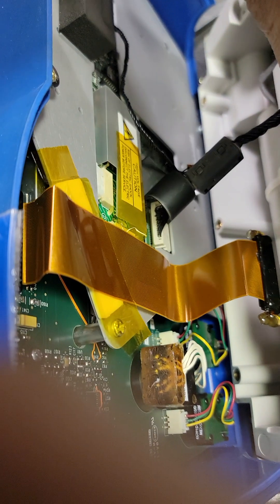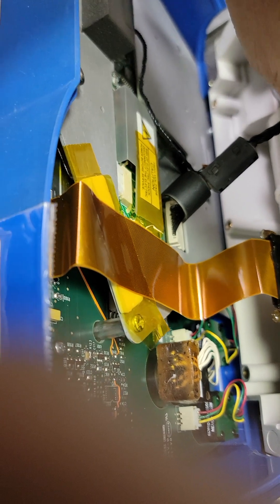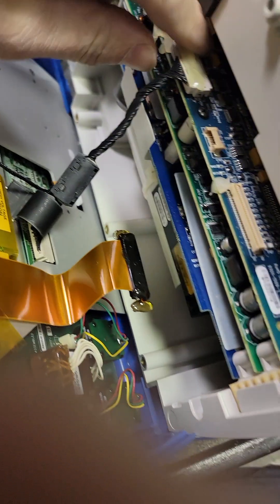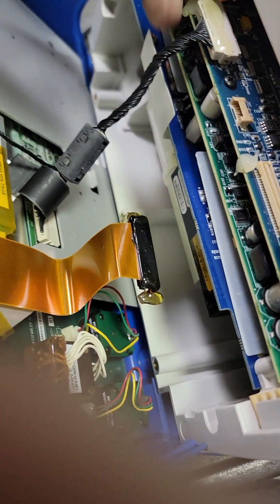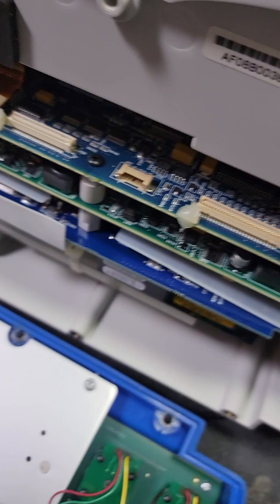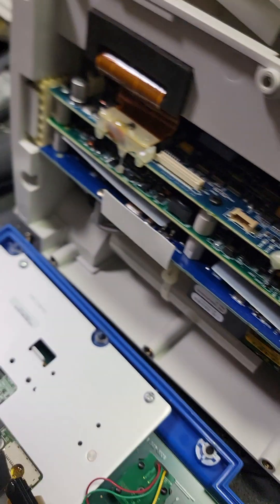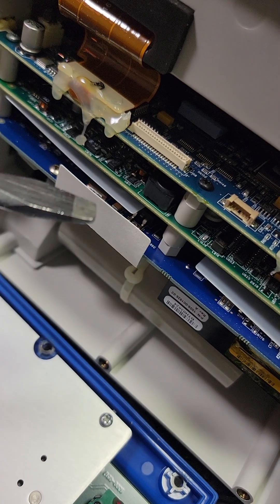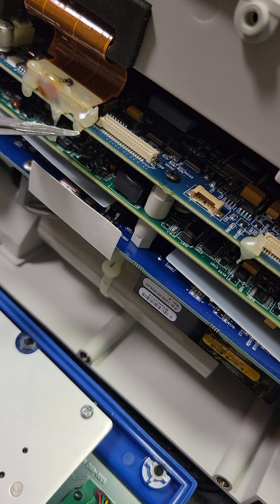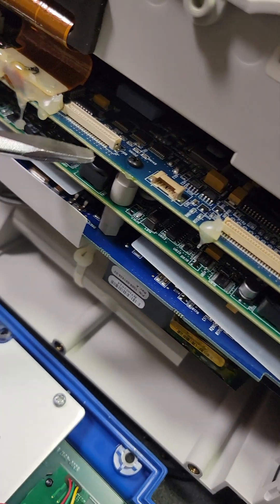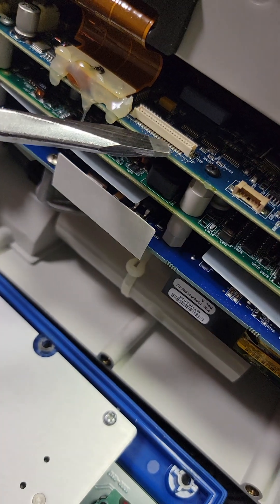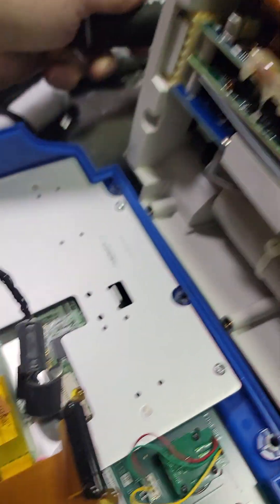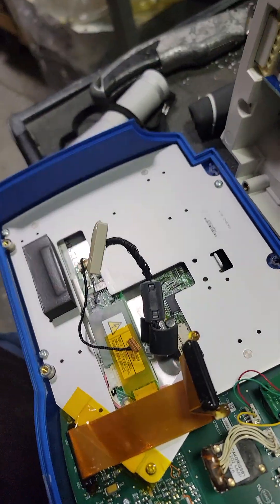Not like they design these things for the average bio-med, whatever that is these days. Try not to pull on the wires too much. Once you get the glue cut or broken, just nice and gentle with the screwdriver, just ease it out so you don't break anything.